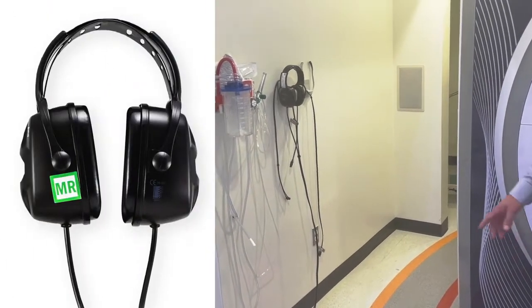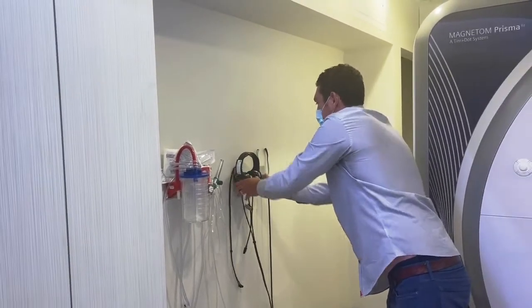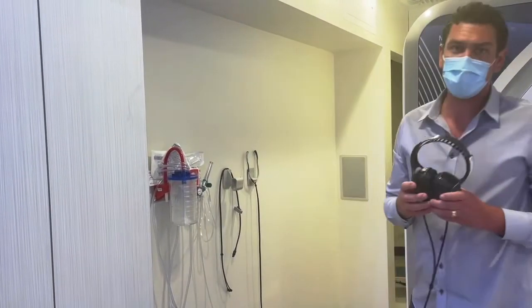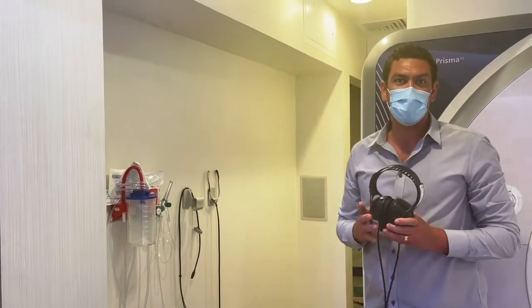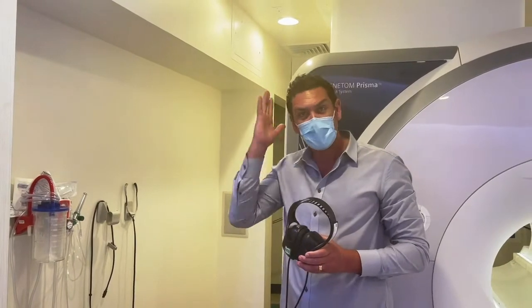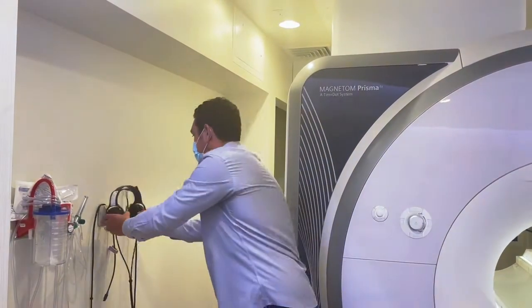Our over-ear headphones go on the mount just like this — they just clamp on. These are used most often when you're doing any scan other than a head or neck scan that requires a low-profile headset.